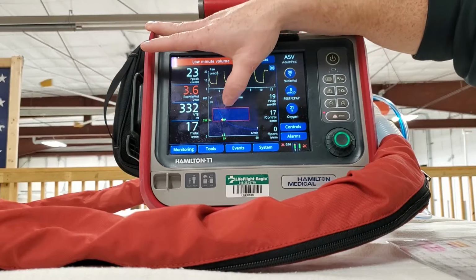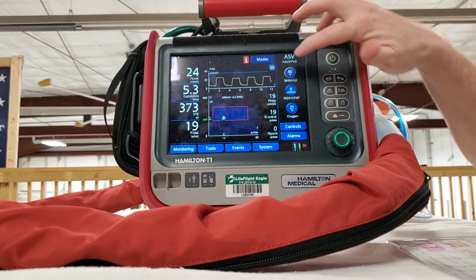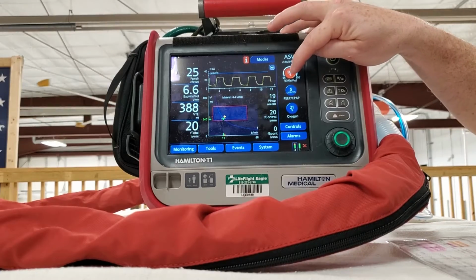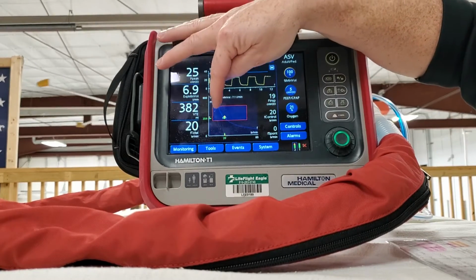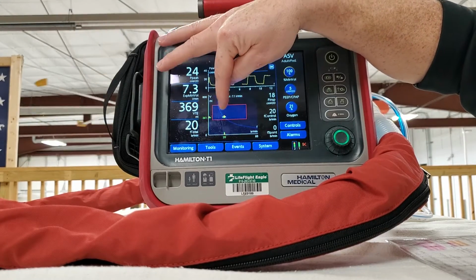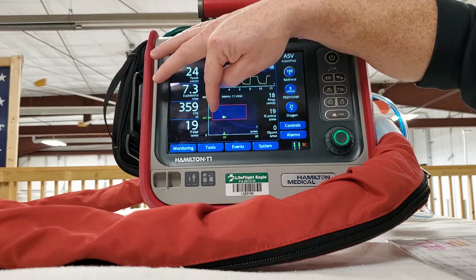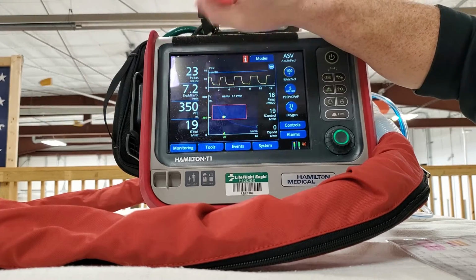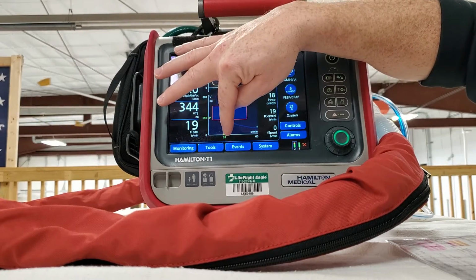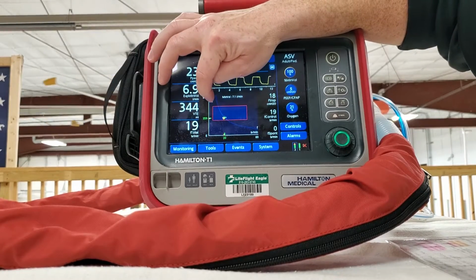Now, you see this box here. This is telling you what the vent sees it can do and the changes that you can potentially make. So if you have a very wide graph, then it's saying that you've got a lot of room to make manipulations and still be safe depending on the other changes you make. Hopefully you're going to have a big and tall box, but this is a long box, so you have some room you can make for your respiratory rate, but you don't have a lot of room you can do for tidal volume.